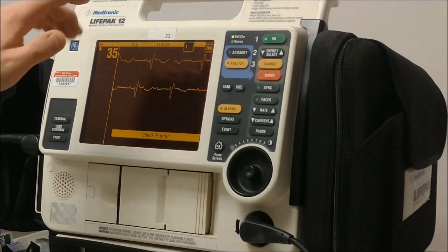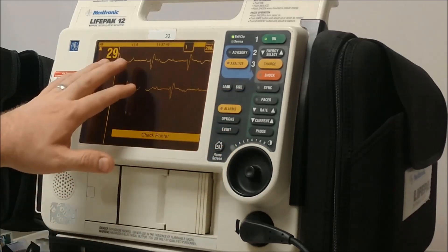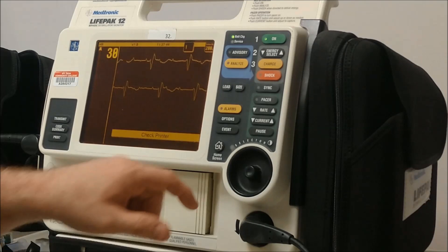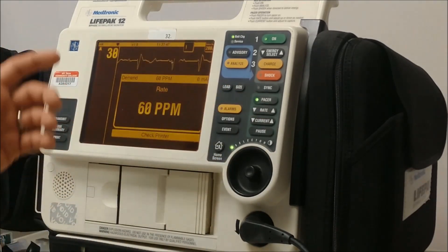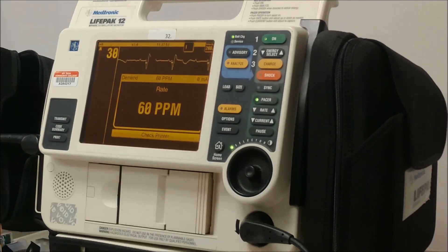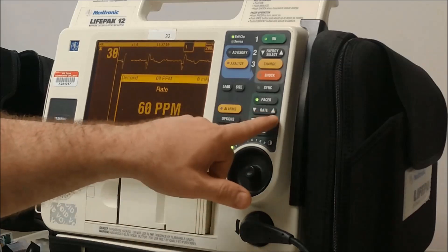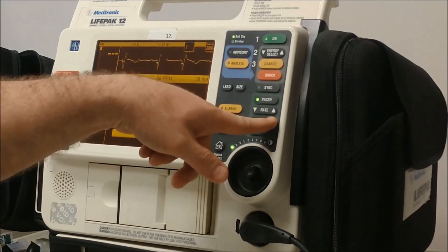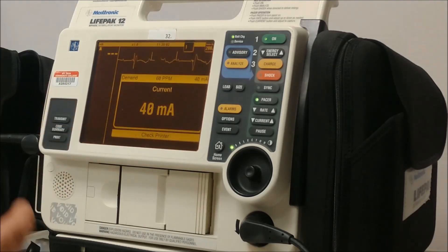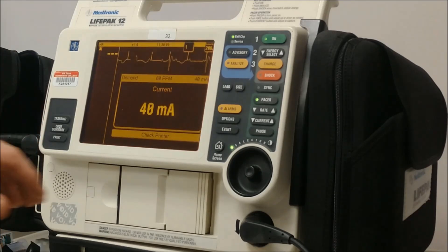Let's get the transcutaneous pacer ready. On the LifePak 12, setting the transcutaneous pacer up, we use this area right here. We see our monitor showing our third degree heart block, rate of 29. We're going to start by hitting pacer and setting the rate — we'll go with 60. We have the ECG on and the paddles on this patient.